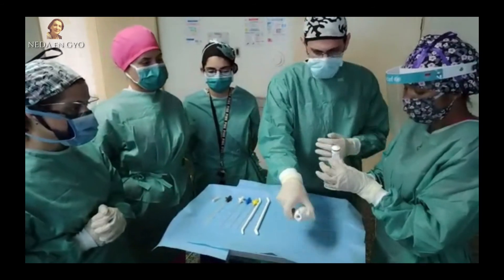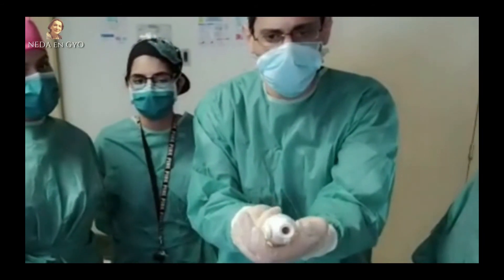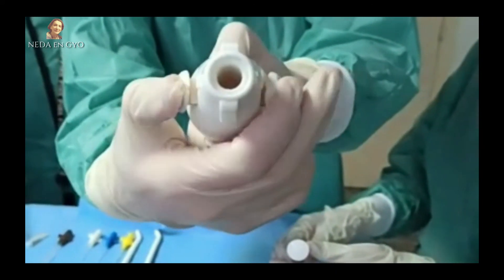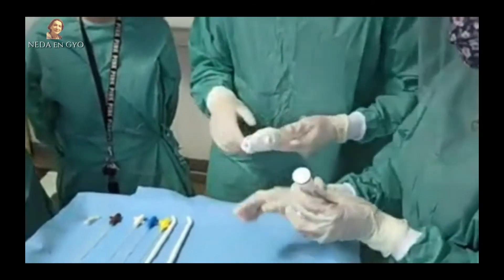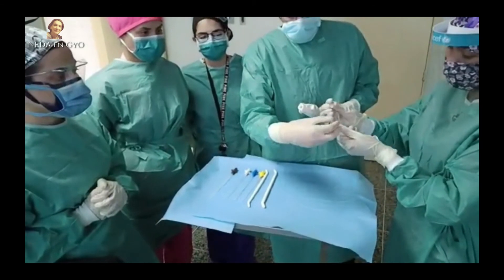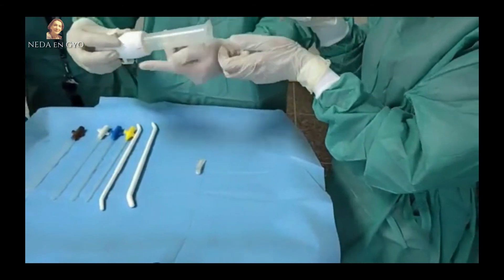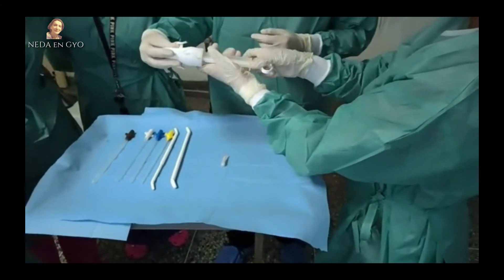Antes de introducir el émbolo, se debe colocar gel en el anillo O, que es el anillo negro. Previamente debemos cerciorarnos de que las compuertas estén cerrando y abriendo correctamente, ya que si quedan abiertas o no cierran completamente, se perderá la presión negativa y no se producirá la aspiración. Se bordea el anillo con gel y se introduce dentro del cilindro para que desplace adecuadamente y sea más fácil la realización del sistema de aspiración.